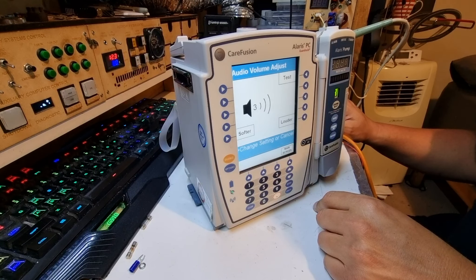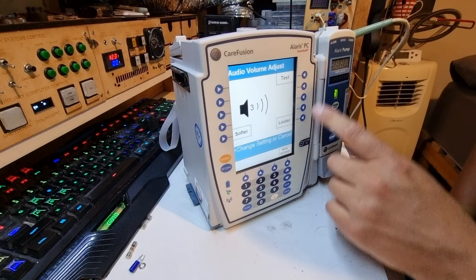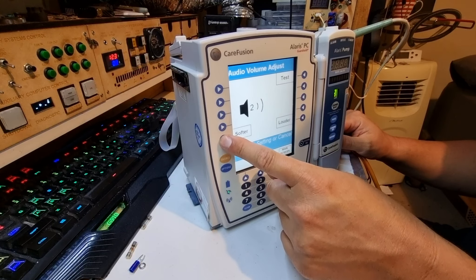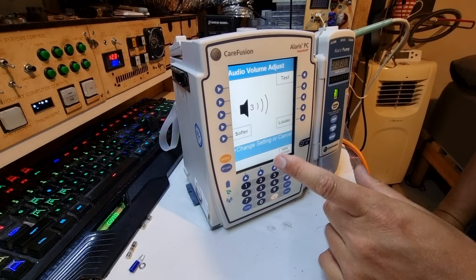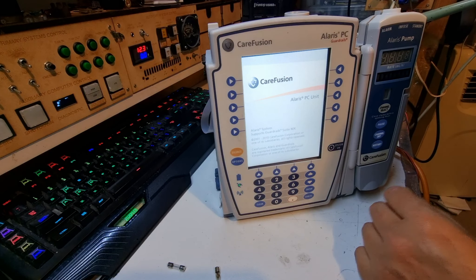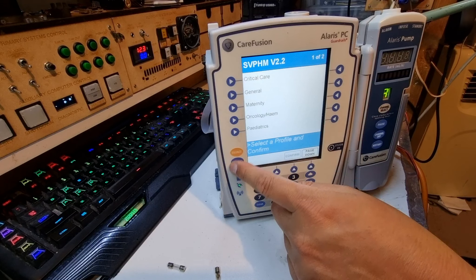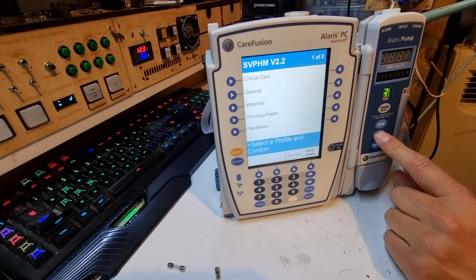The channel's come up — that's good. Don't clear the previous channel data for now — yes, use the same profile. I don't want to mess with what they've had set up. There's an audio adjust feature which is handy when you're in the hospital and the beeping is too loud to deal with but you don't want to silence it completely because the nurses get grumpy with you — you can go louder or softer. This is actually going to work, I think. There's a slight difference in how you power it down when you have a channel connected — you push and hold 'channel off' and then it shuts the whole system down.